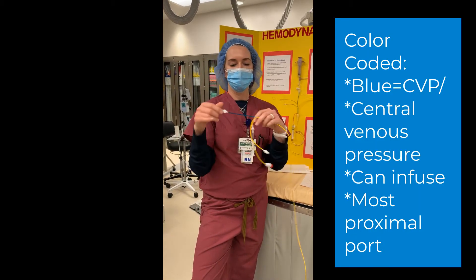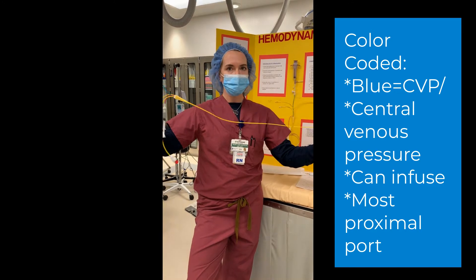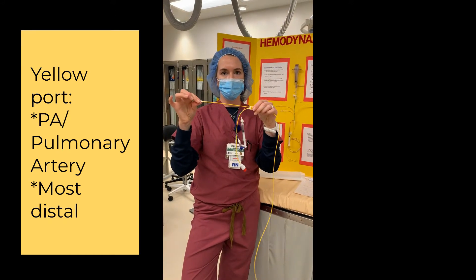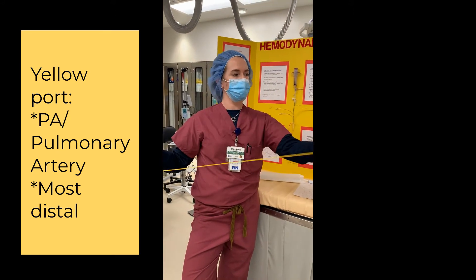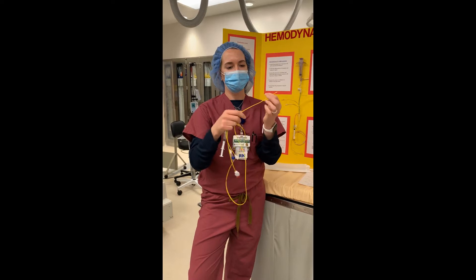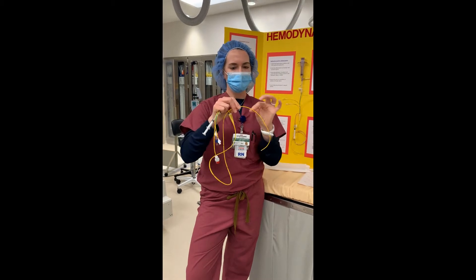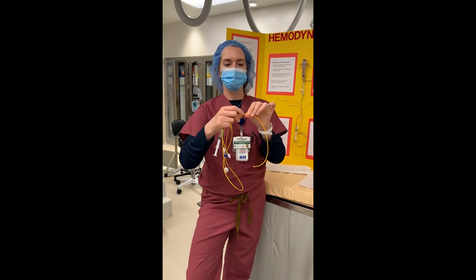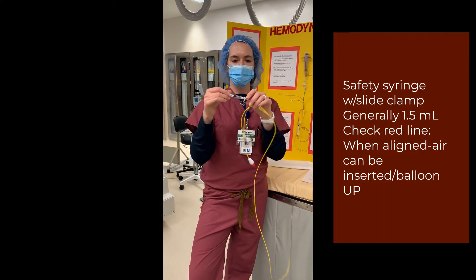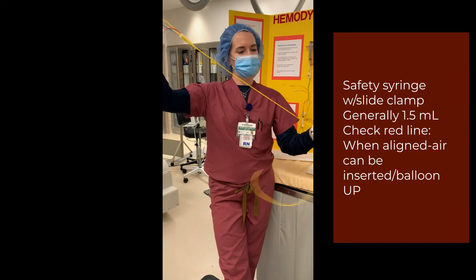On this end you're going to see a couple of different colored items. The blue right here is the CVP port — that's the most proximal port of this device. The yellow is your PA port — that is the most distal part of this device, with an opening all the way at the tip. The CVP opening is more proximal on the tubing, right at 30 centimeters — you can feel it as a slight bump.